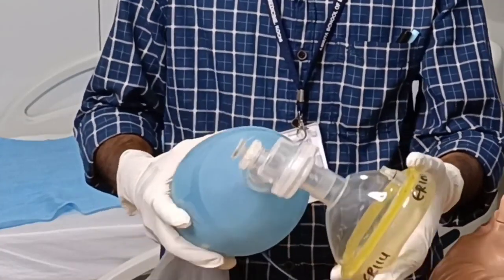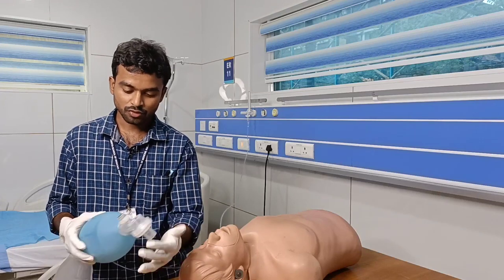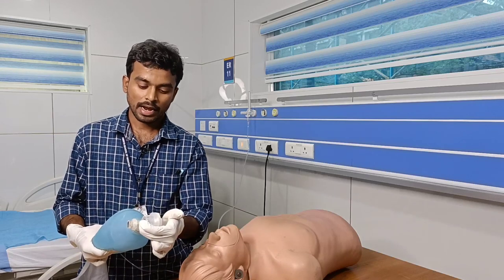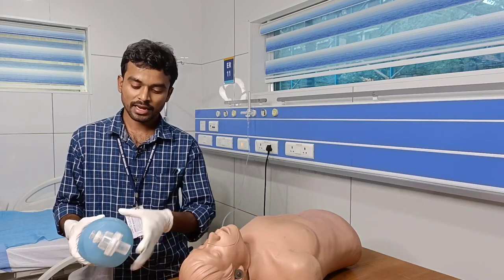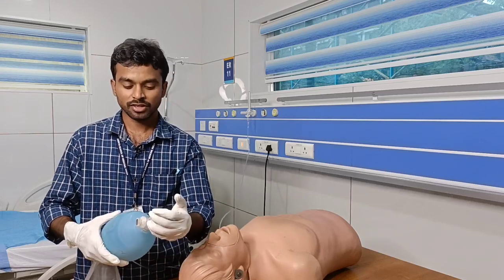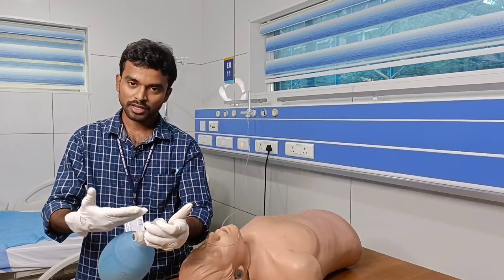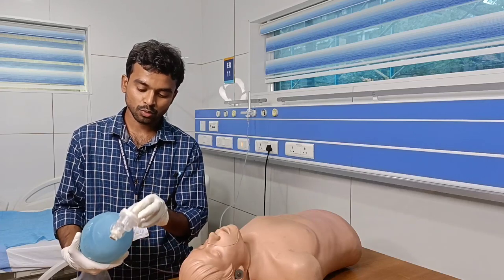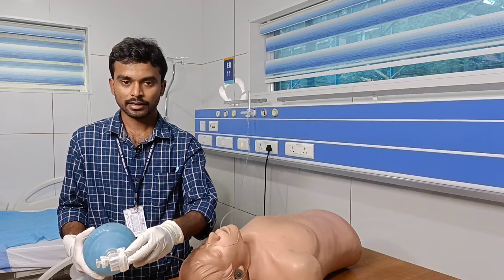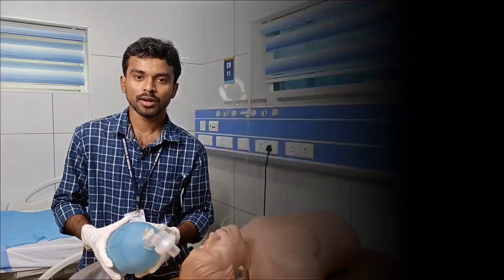When you squeeze the bag during ventilation, the fish mouth valve opens and delivers air or oxygen to the patient. When you release, the exhaled gases from the patient do not re-enter the bag — they are eliminated through ports on the side, where exhaled air and carbon dioxide are expelled.